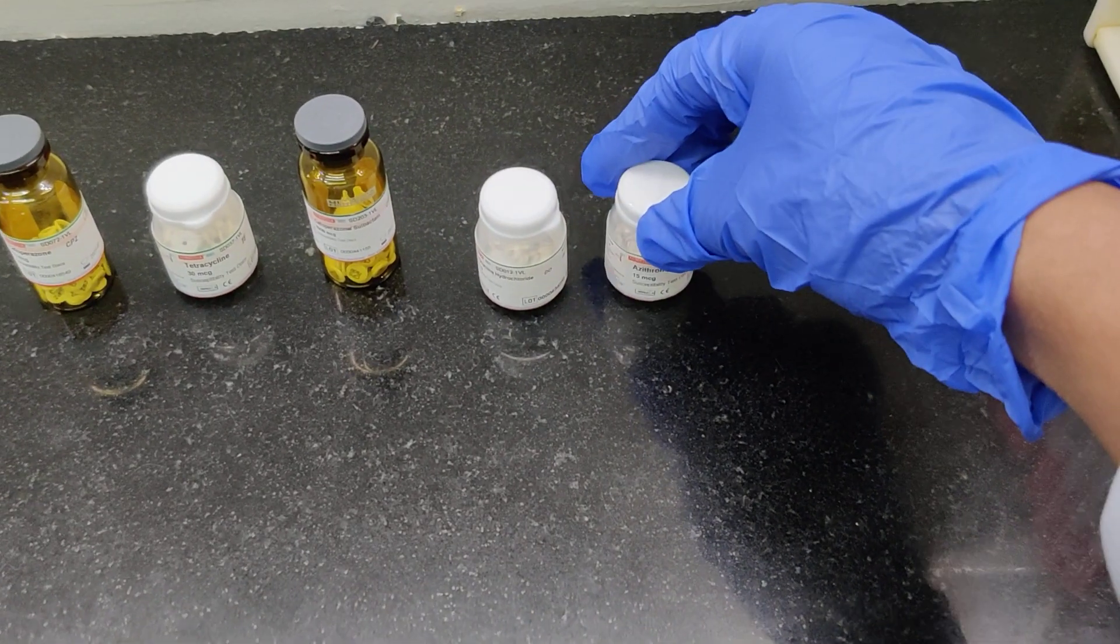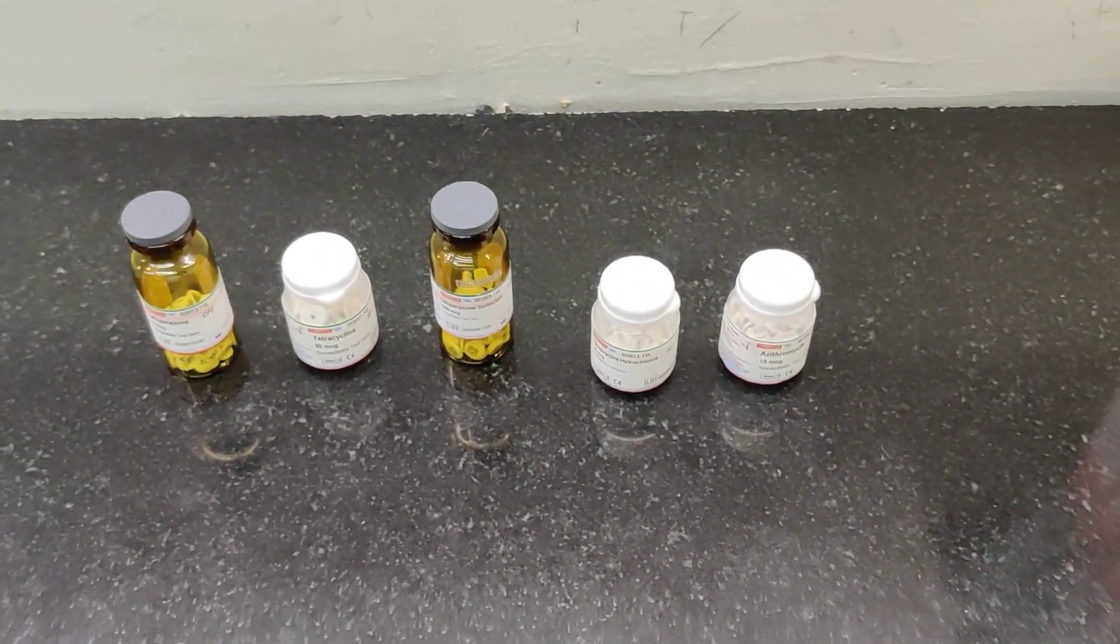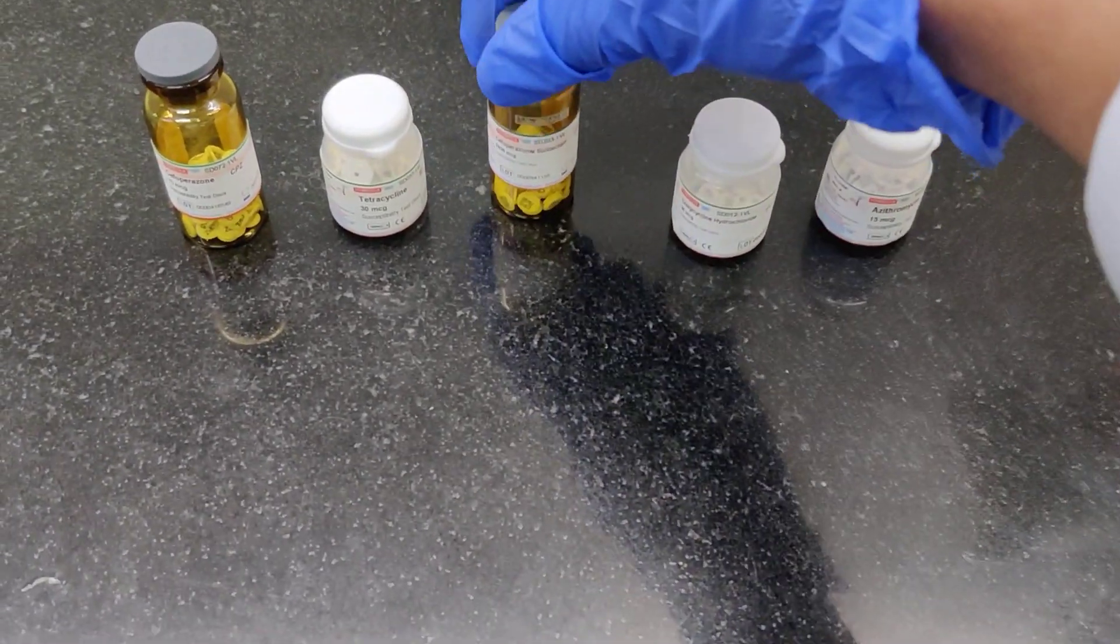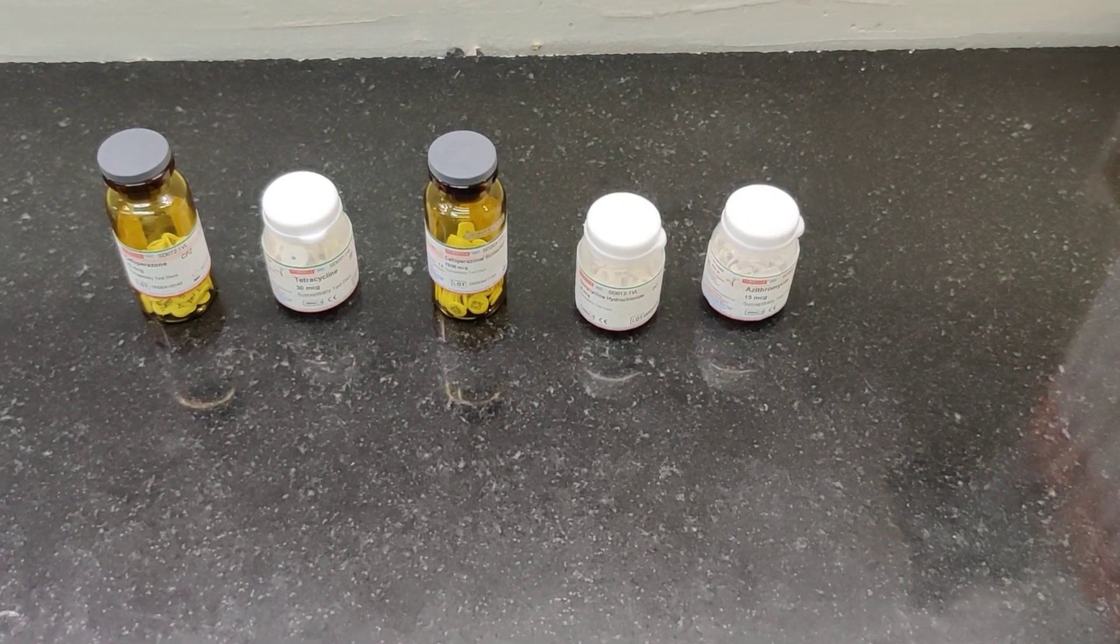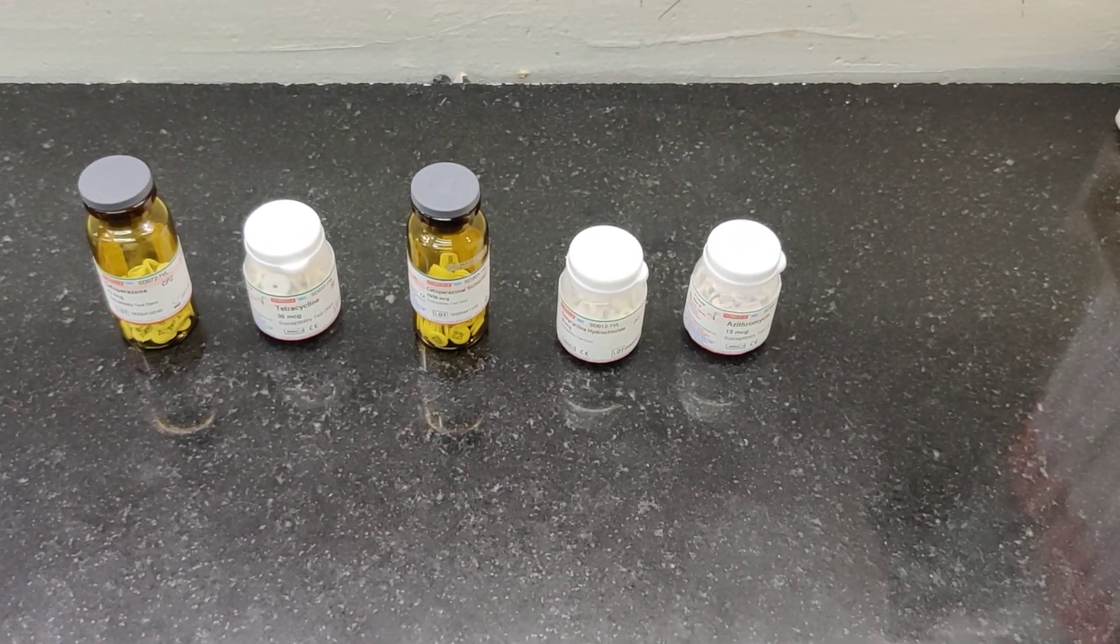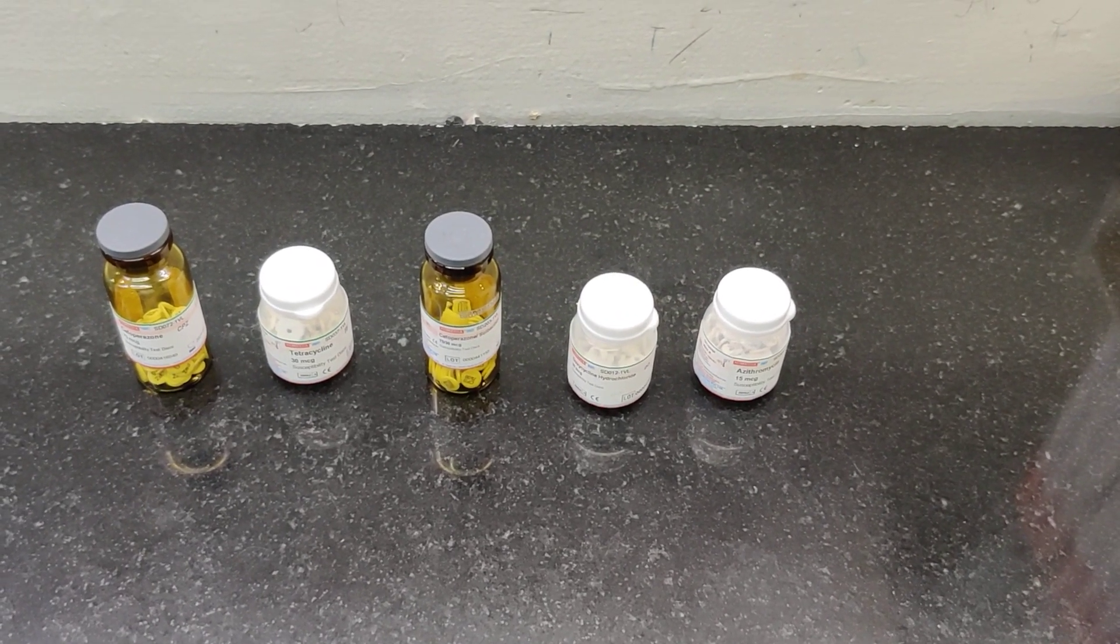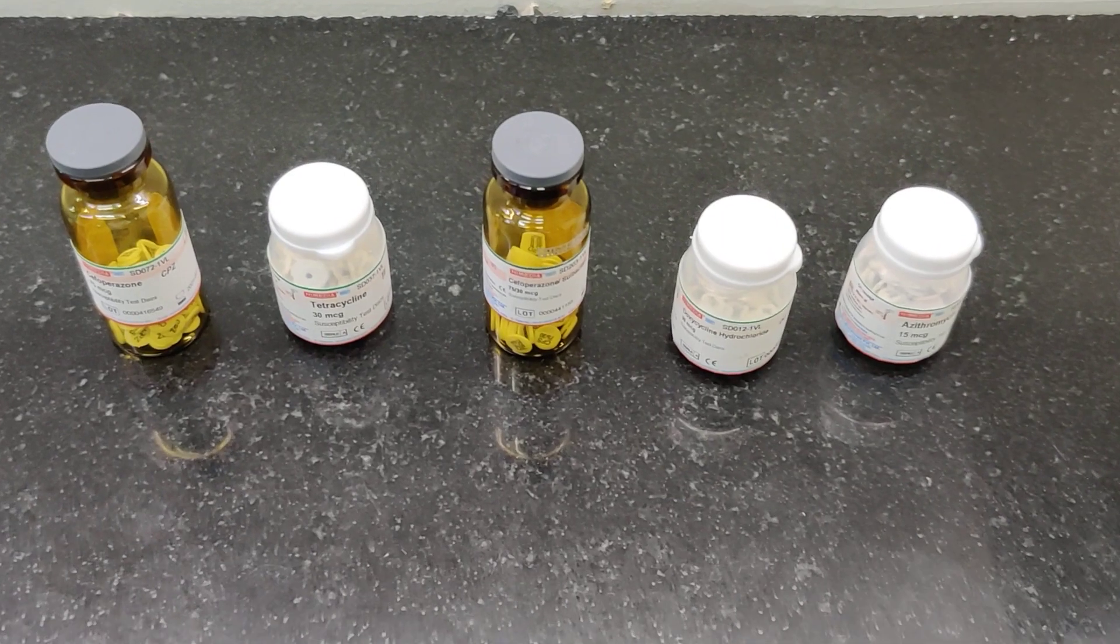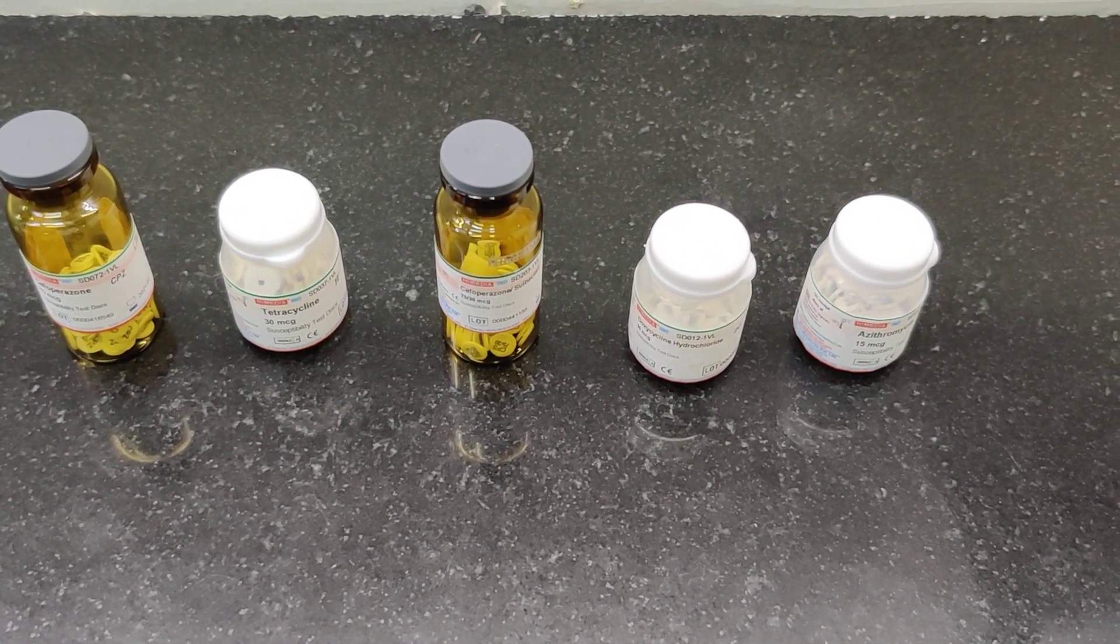Once we have concluded whether we are dealing with a gram negative isolate or a gram positive bacterium, then we can select out of all these discs which drugs are going to work against gram positive organisms or gram negative organisms. So accordingly we are going to make our choice of the discs which we're going to use in the disc diffusion method. Of course, there are certain antibiotics which are going to work against both gram positive and gram negative as well.